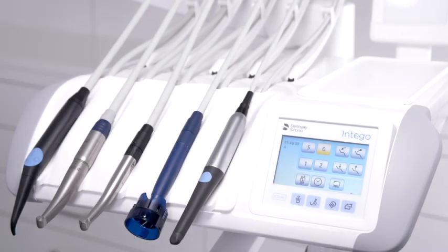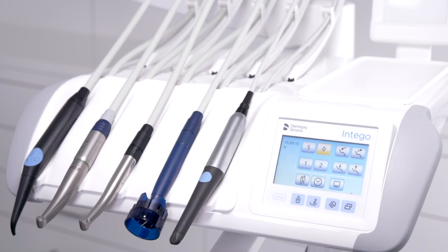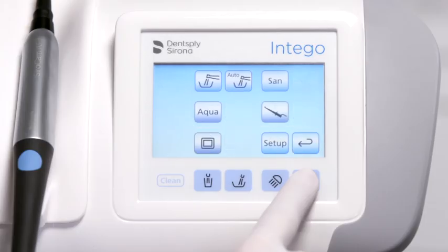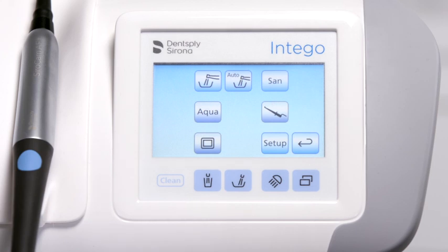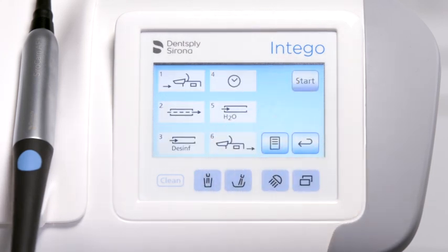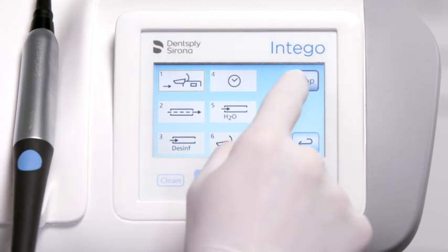Sanitize the treatment center at least every four weeks or after an extended period of non-use. Press the submenu button in the start screen to open the hygiene programs. Activate the function by pressing the sanitization button. Follow the instructions visualized on the screen.